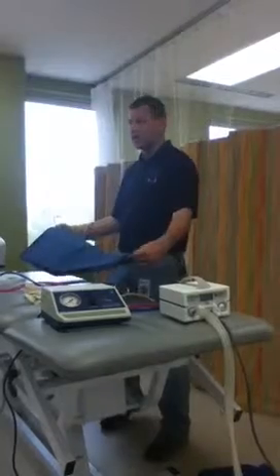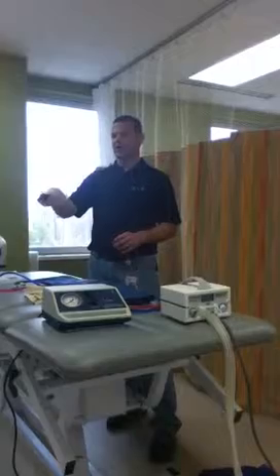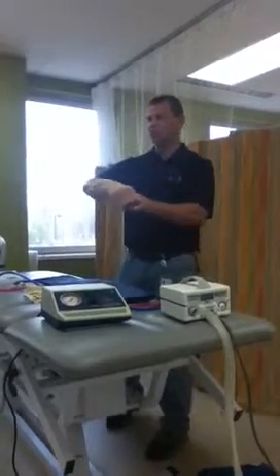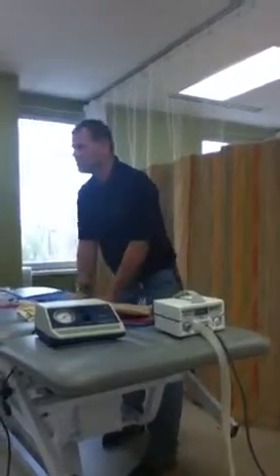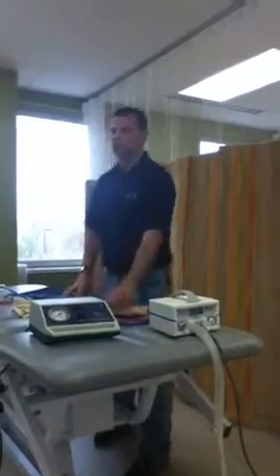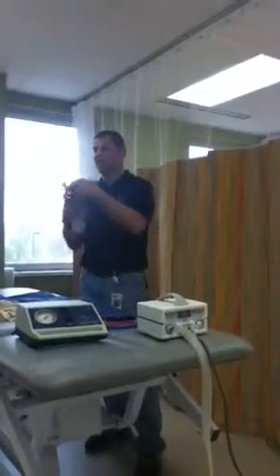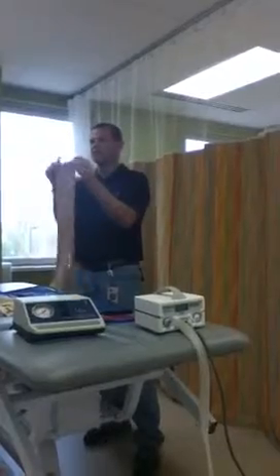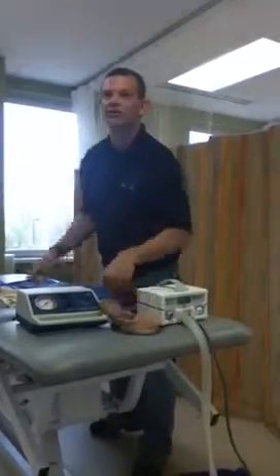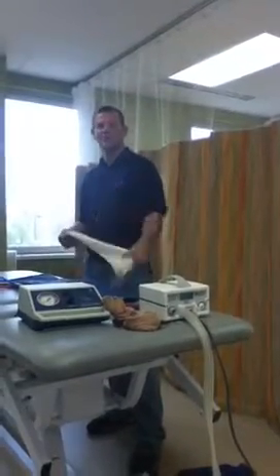They will occasionally use something like this to help if somebody's got a really edematous limb, or if they haven't been wearing their compression stump shrinker. You'll end up getting a ball of fluid at the bottom and the top of their leg will be normal shape, so they may use this to get it back into more normal shape so they can start wearing their stump shrinker again. That's not stockinette even though it looks a bit like it — you see the difference is these little ribs, and these are specific lengths. These are much more expensive too. Everyone just calls them stump shrinkers.